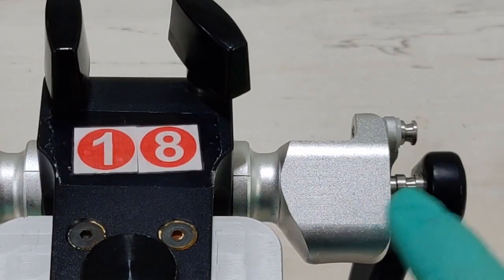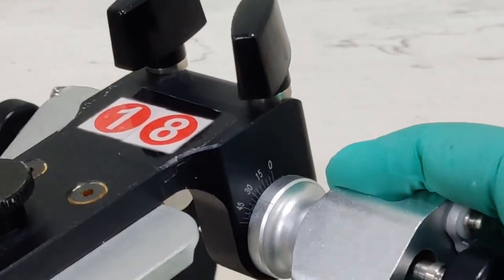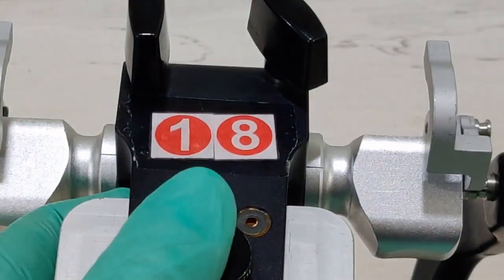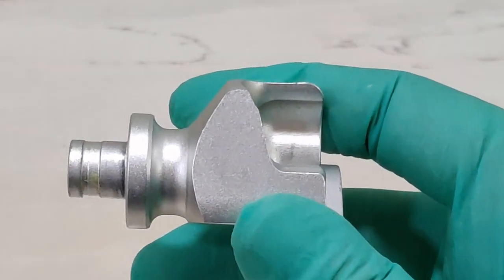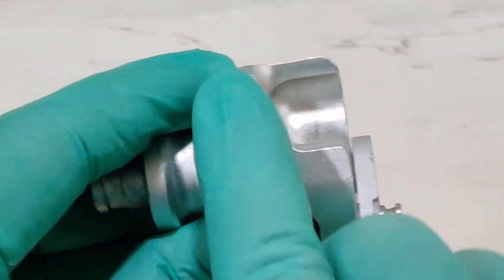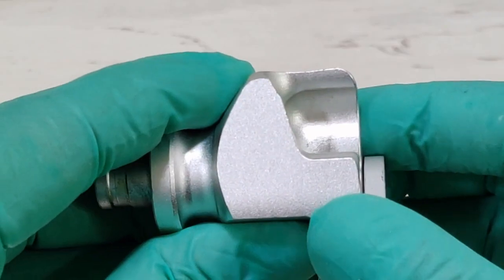Now as I come to the simpler version, remember this is much simpler than the CSA 600. Now recognize this knob. This knob is the exact same. These angles are the exact same. So the H value does not change. However, there is a change in the L value component. So let me open this out, move this away, remove the L value component and show this to you. Look at the base. I'm sure you recognize that there is an angle that is prefixed into the base. Now this angle, friends, that you see prefixed is set at 15 degrees, which means the L value on this articulator is already prefixed at 15.